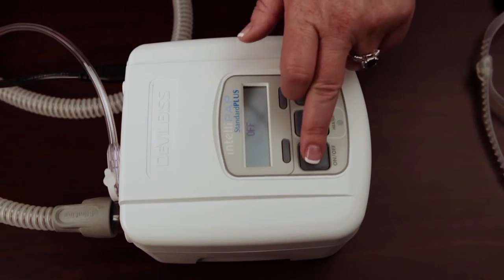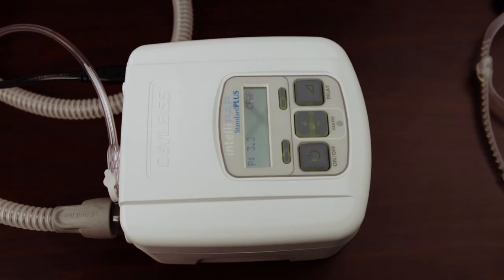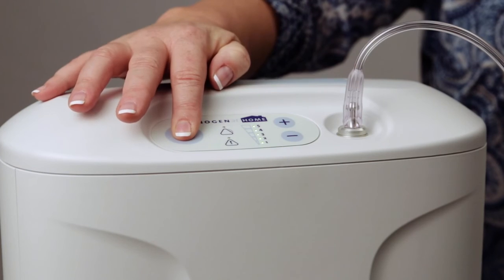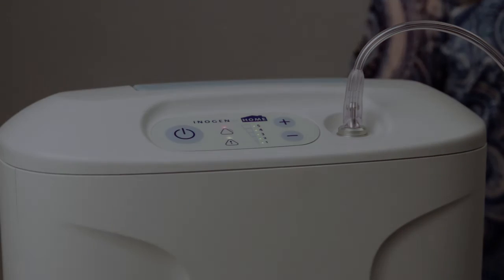Turn on the CPAP unit first and then turn on the oxygen concentrator.